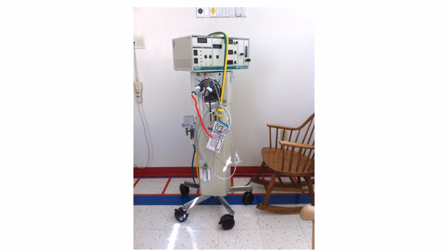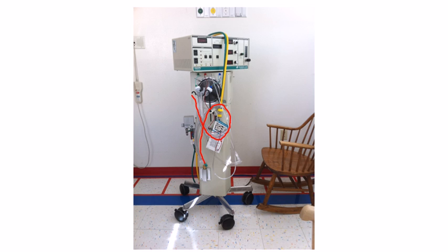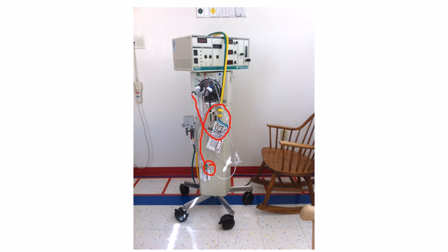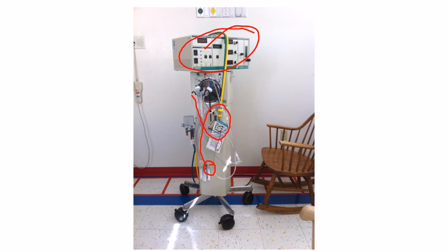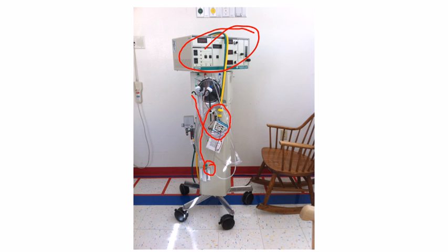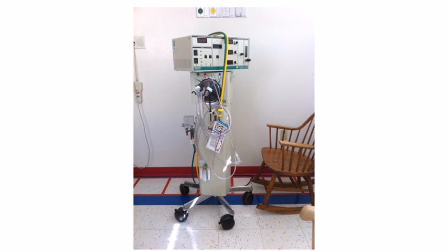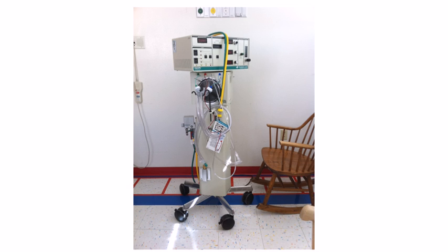This circuit is actually a very hard plastic type of tubing — it's very hard, it does not have any give at all. You can see there's a little green cap on the end of it there. When we set the machine up, when we're initially putting in our variables before we attach this to the patient, that solid cap needs to be on there. Because this is a type of pressure ventilation, I have a pressurized system.